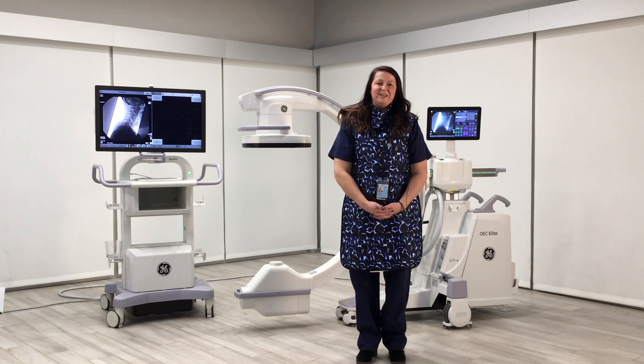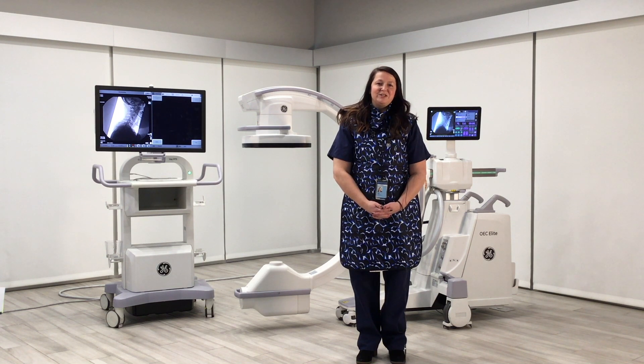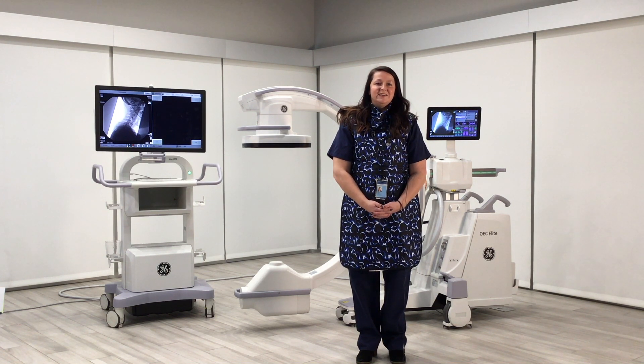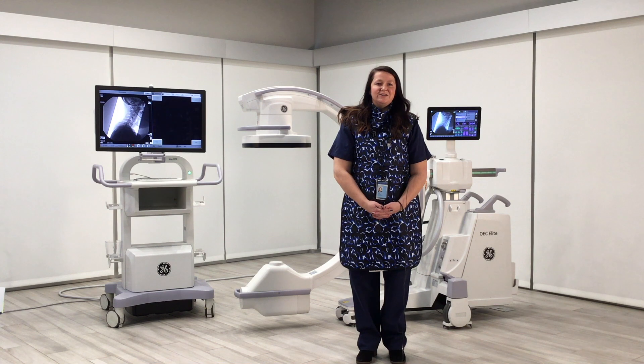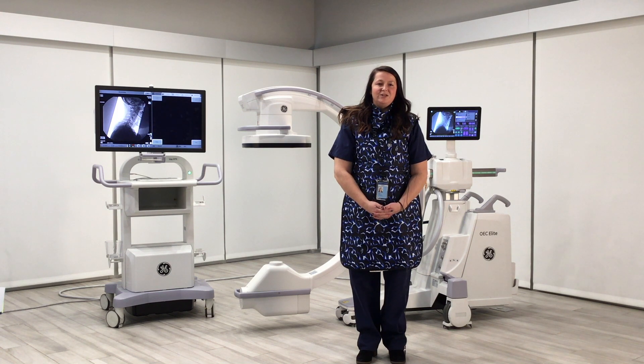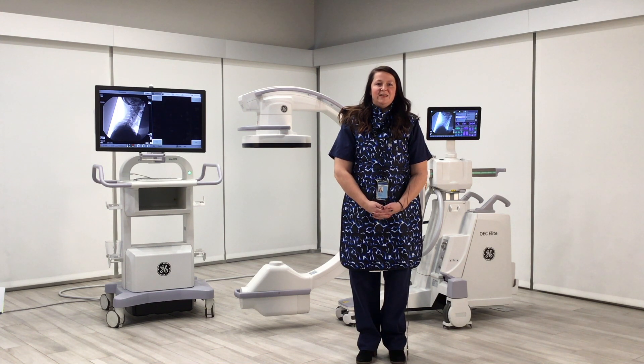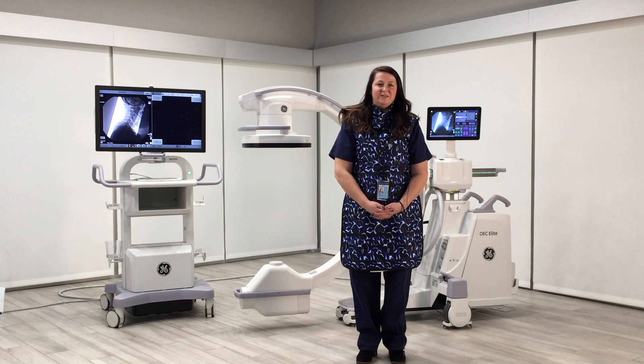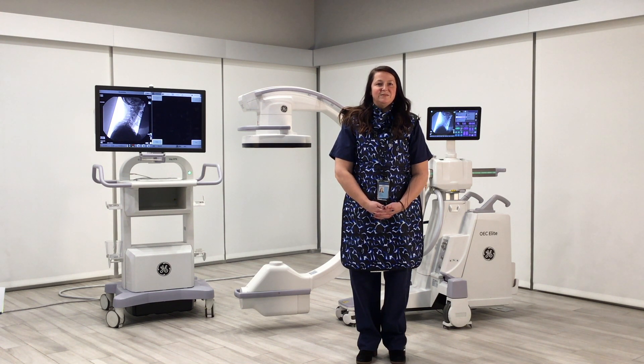Hi, my name is Aubrey Kilduff, Clinical Imaging Specialist with GE Healthcare. Today I'd like to talk to you about radiation optimization and implementing the ALARA Principle on the OEC C-arms.